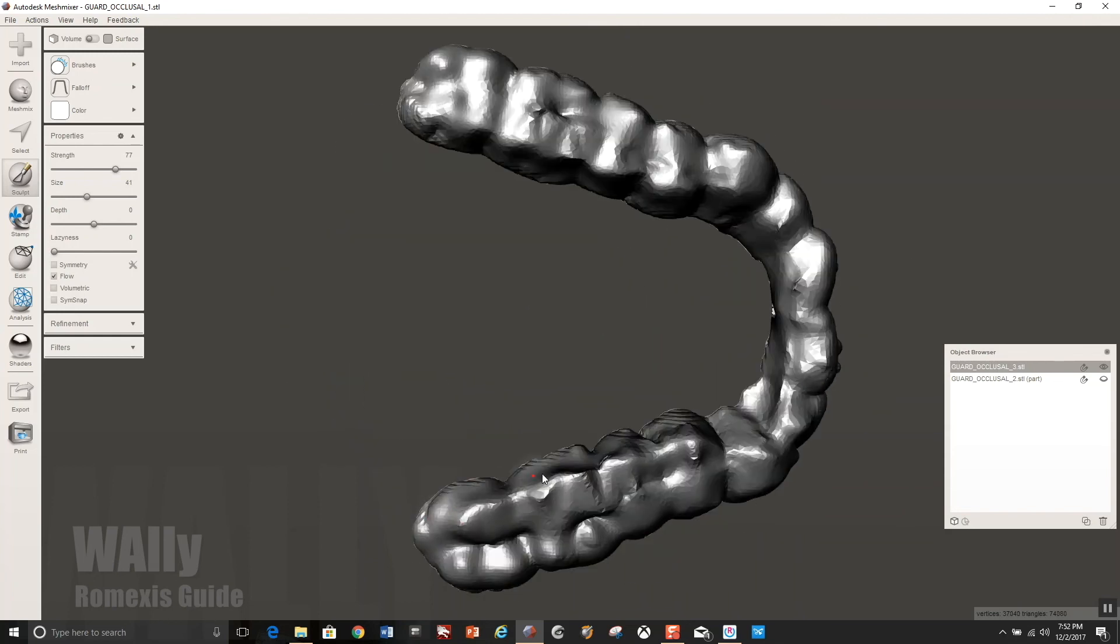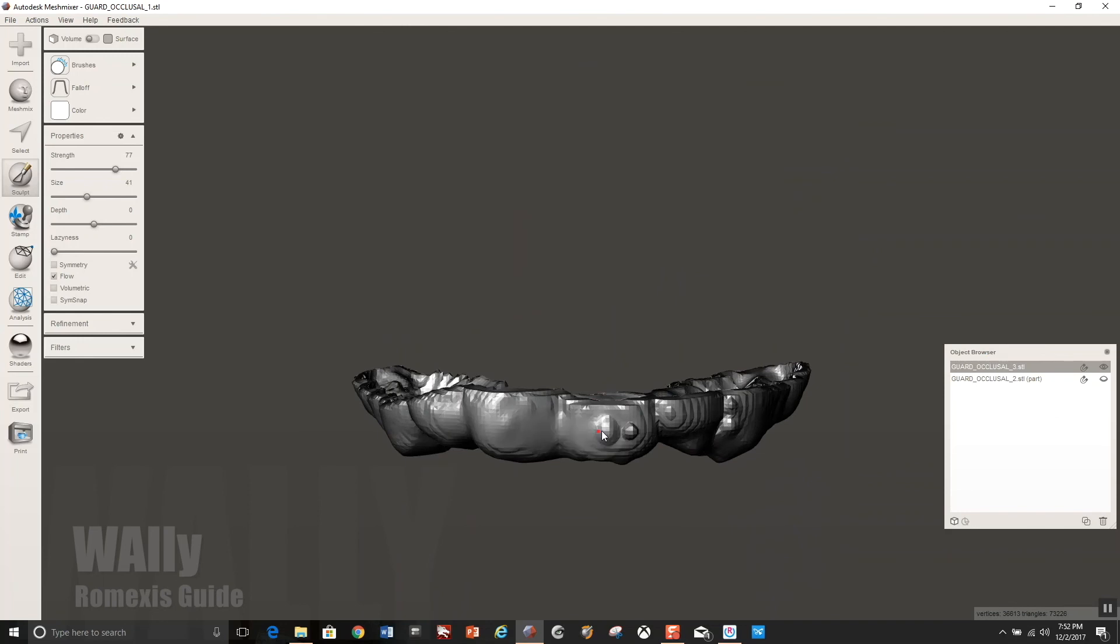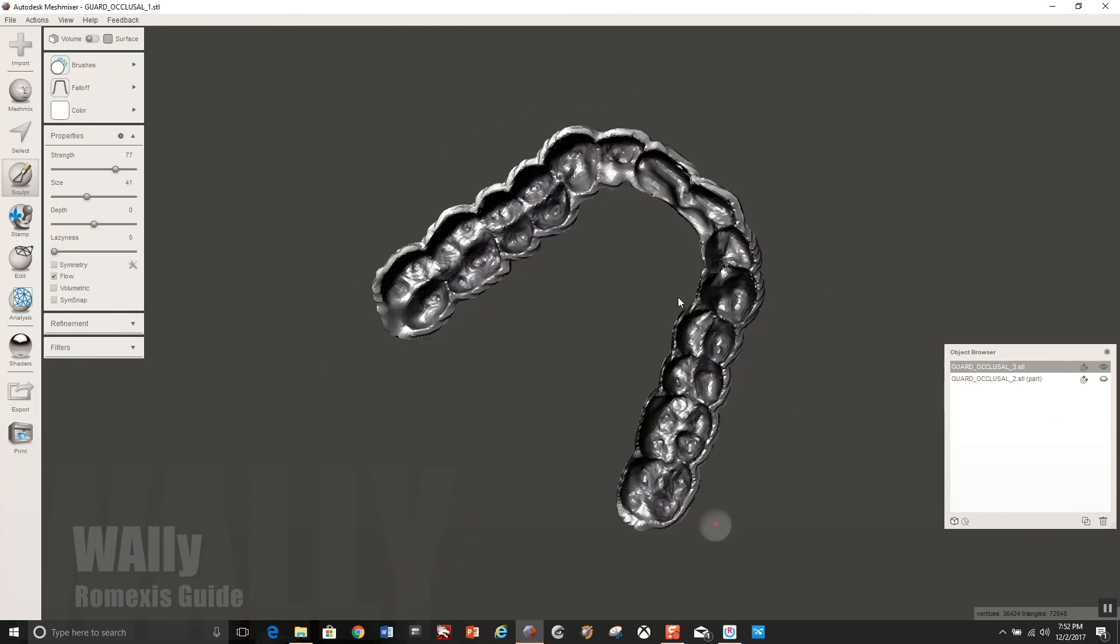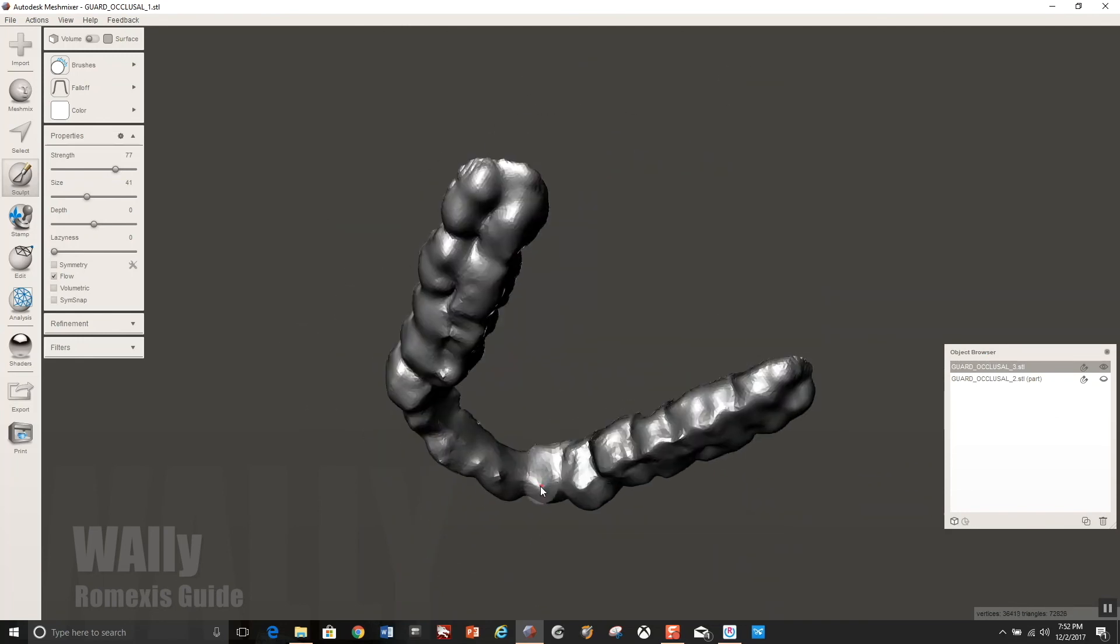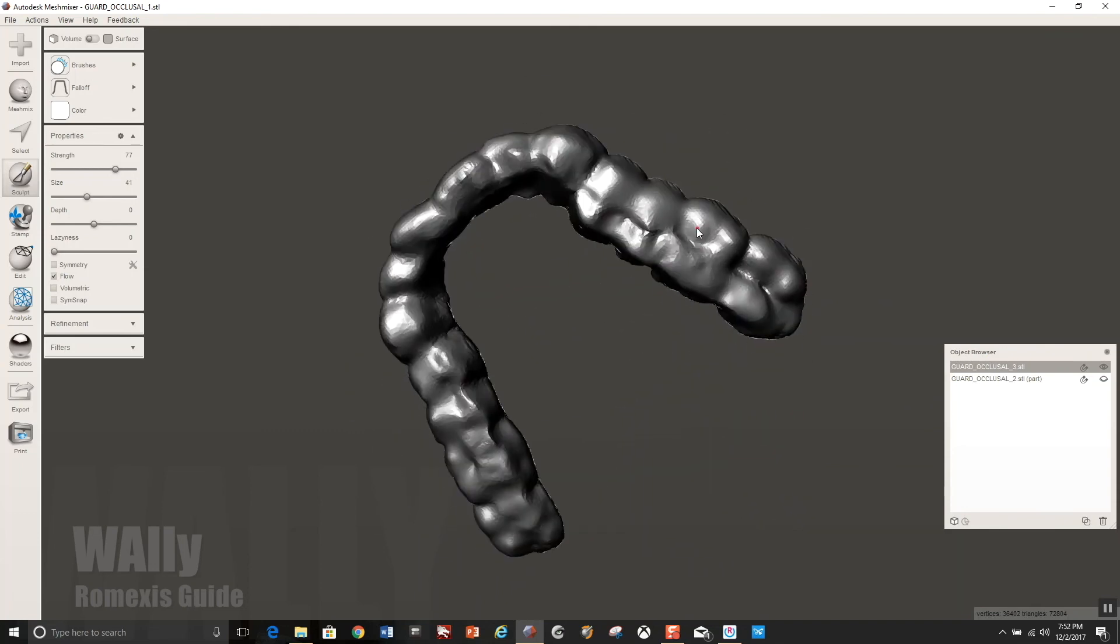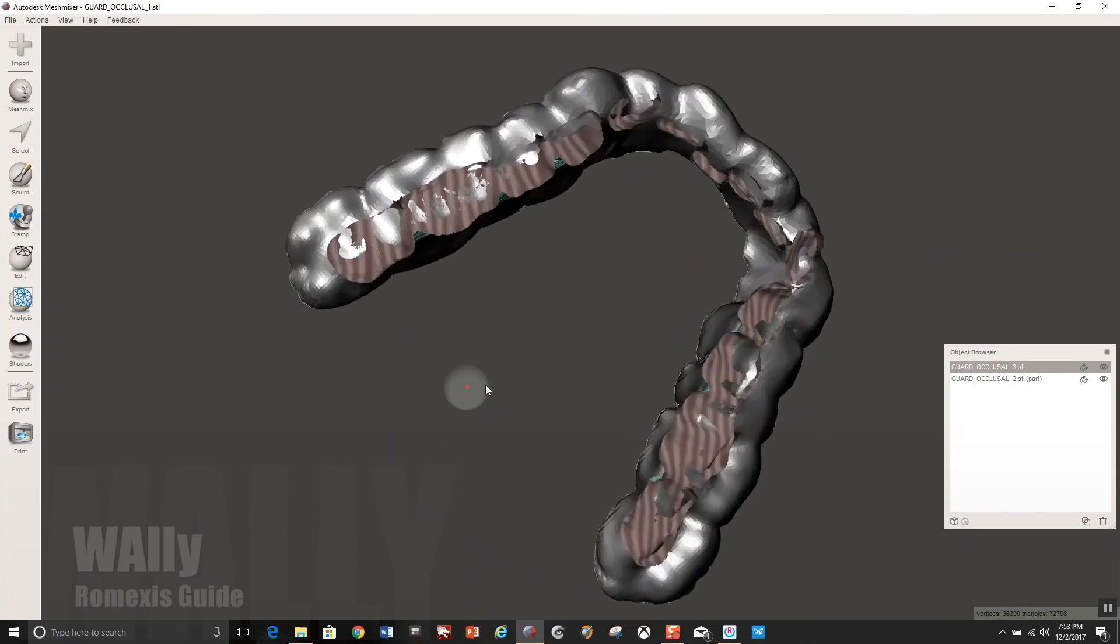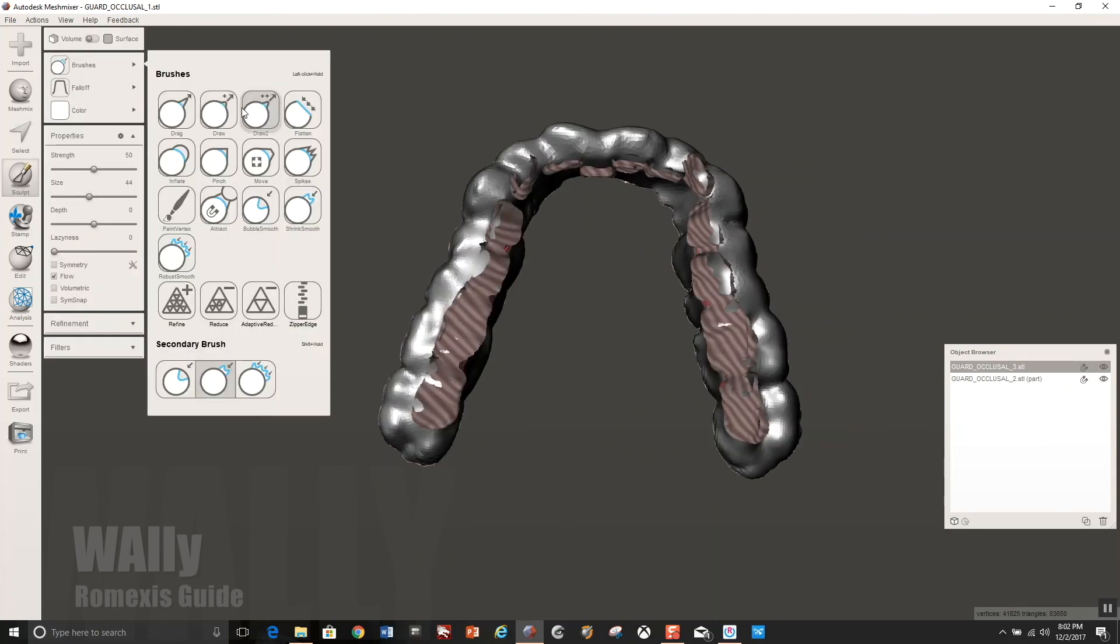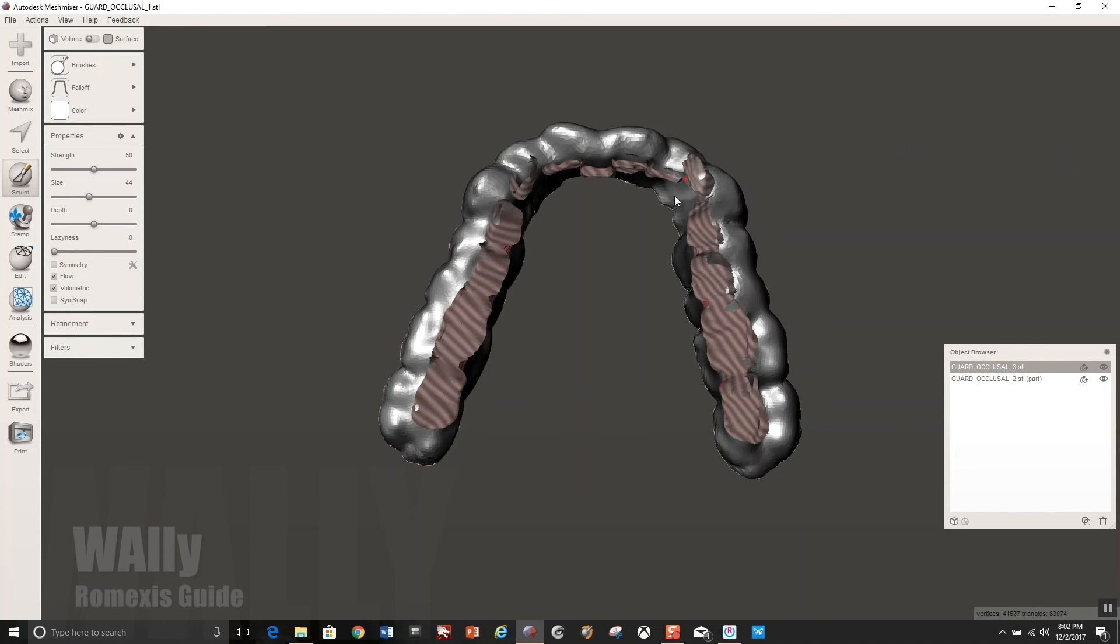I'm just going to quickly smooth everything out. You don't have to do this step, but I think it makes it nicer. And you could re-impose the occlusal table back on to check to make sure that your smooth didn't create too many high spots. And if it did, you just use the drag tool or one of your favorite tools to kind of just click and remove those heavy spots. Alternatively, you could do it with a hand piece after you try it in.